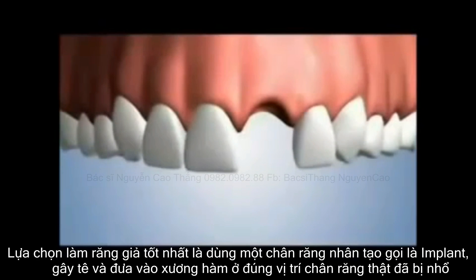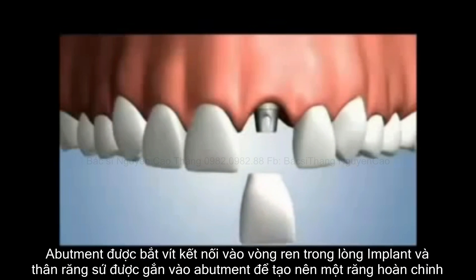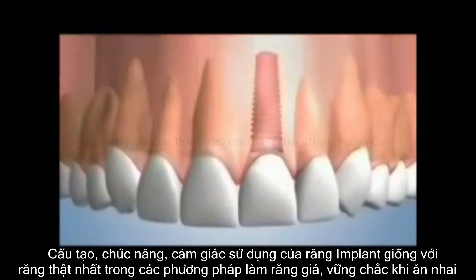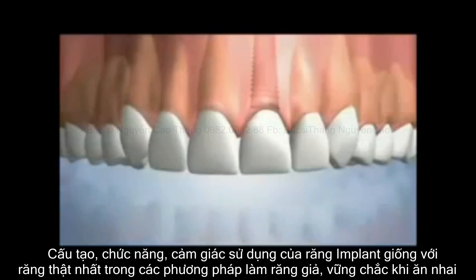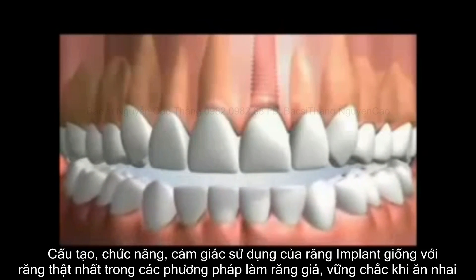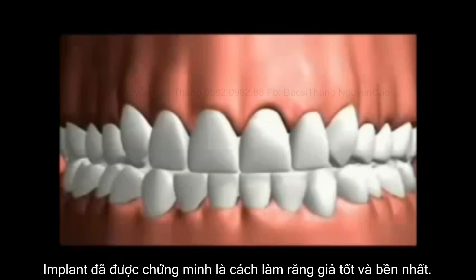The fourth option replaces the natural tooth root with a dental implant that is inserted into the bone. An abutment is secured to the implant and a crown is secured to the abutment. The dental implant option closely mimics the design and function of your natural tooth. The dental implant is the most secure option with a solid foundation of bone that keeps it stable, withstanding the forces of biting and chewing. An implant feels and functions like a natural tooth, and it is proven to outlast all other tooth replacement options.